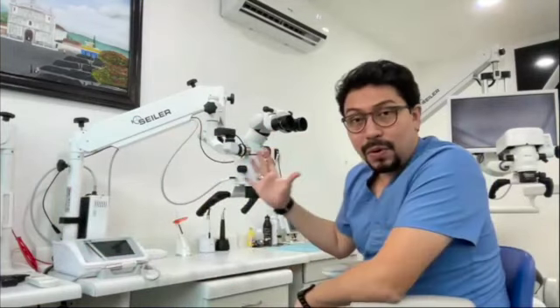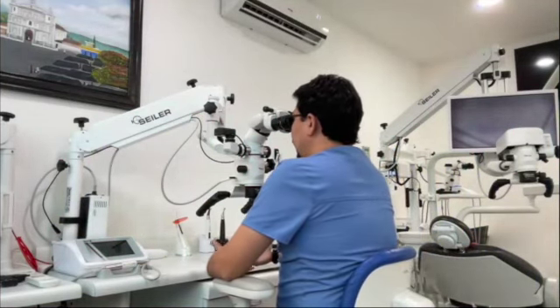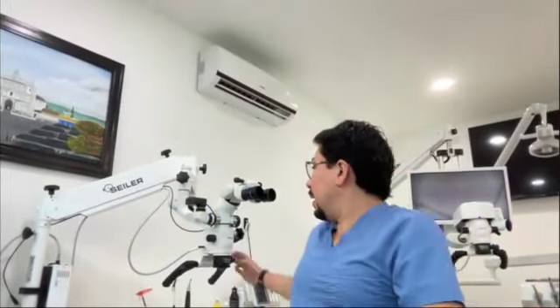But what happens when I work with the help of the regular microscope in this way? I lose my peripheral vision. At least at the very beginning of the learning curve, I am going to lose my peripheral vision. And if you don't have that peripheral vision, you are not going to know where your hands are located. And it's difficult to have fine and precise movements if you do not generate that eye-hand coordination. And that's the main point of why getting used to the regular microscope is more difficult. And it generates a lot of frustration.